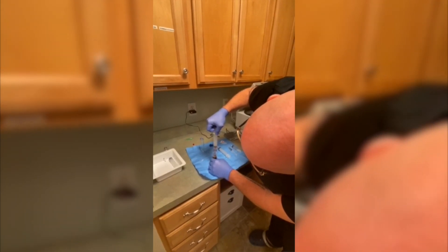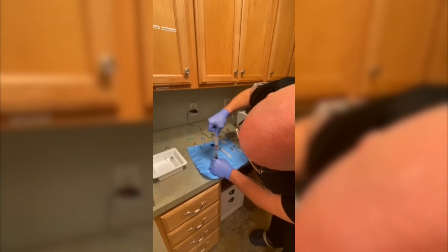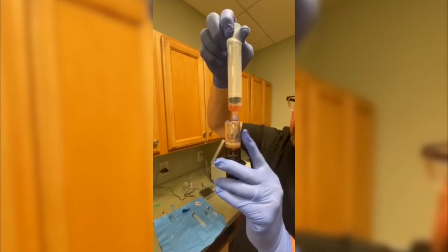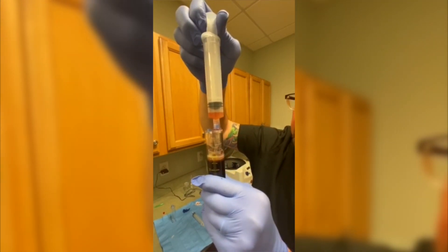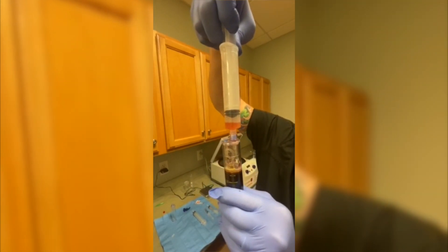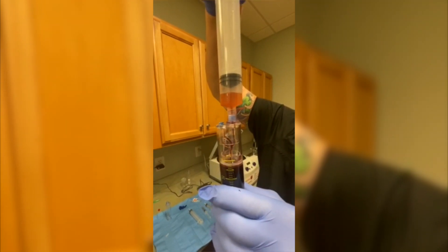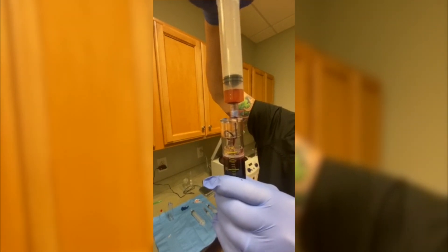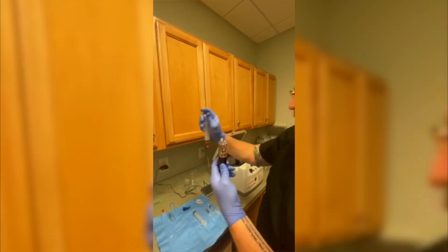Go nice and slow. Watch the tube in the middle — as we pull up, as soon as we see red blood cells enter that tube, we know we need to stop. Once we get a little flash of red into the syringe, that tells us the red blood cells have reached the tube. Now we know we have all the plasma. We unscrew this and there is our plasma.